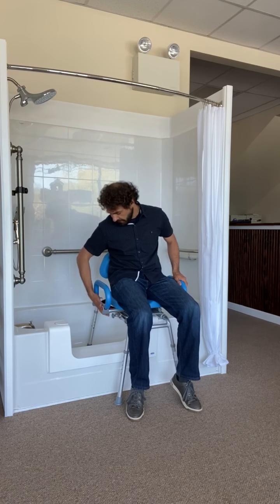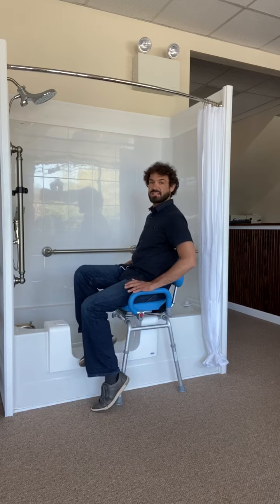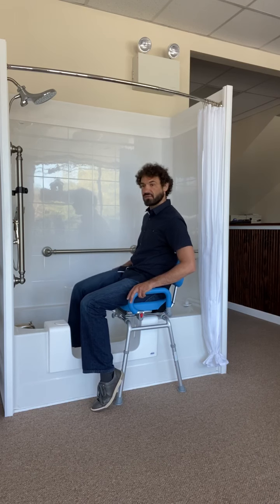Now there are a few levers that we're going to talk about today. This lever right here is on the right-hand side. Now the individual can push down themselves, or if there's a caregiver involved, they can push down as well. And now that releases this seat.